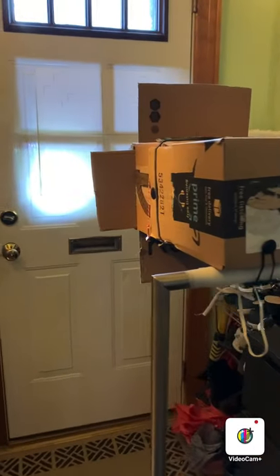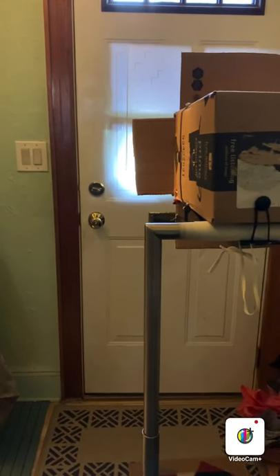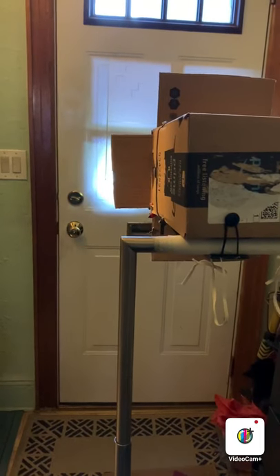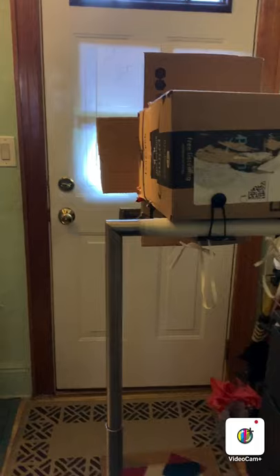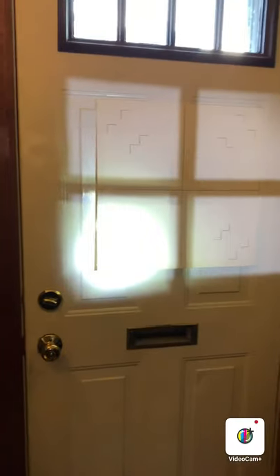Something I've added that's not in the YouTube video is a vertical adjustment. Not everyone will have access to this because it's something I picked up when I worked in retail and they were shutting down the shop. It is a bag hanger that has a height adjustment. With it, I can make a vertical upright bucky and actually draw my own bucky board.